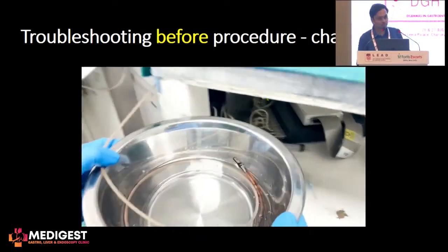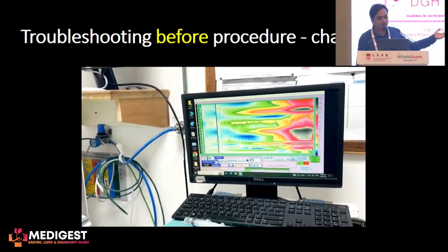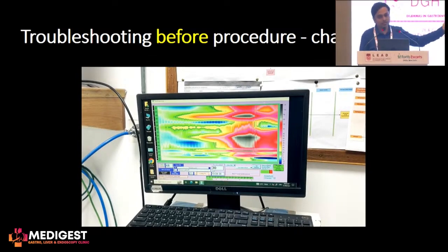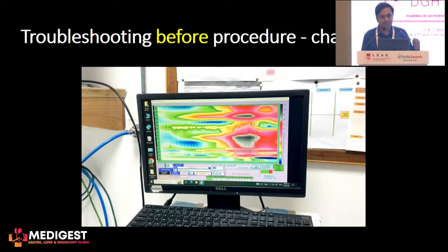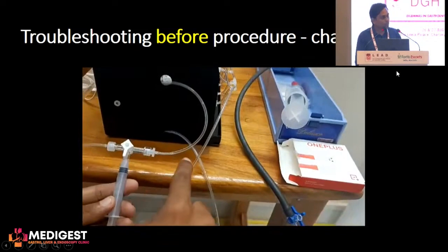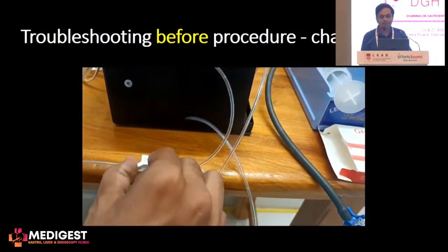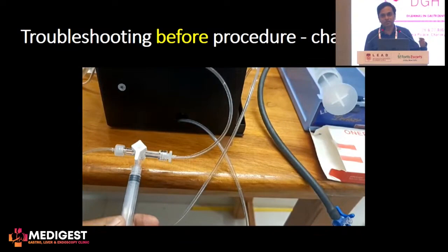Before you do the procedure, the most important thing is to check whether all the channels are working fine. You put the catheter in water and lift it — what you would ideally want to see is that the pressure rise is equal in all the channels. If you see different colors in different channels, that means the system is not working right. In such a case, you flush all the channels properly to make sure that all channels are perfusing water effortlessly, repeating the flushing several times until you have equal pressures in all catheters.